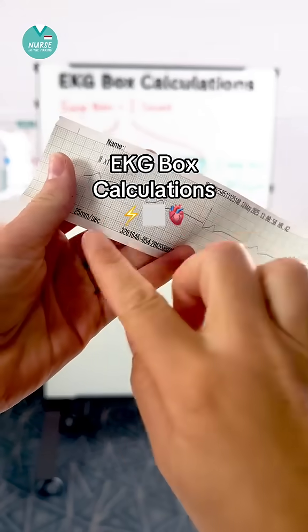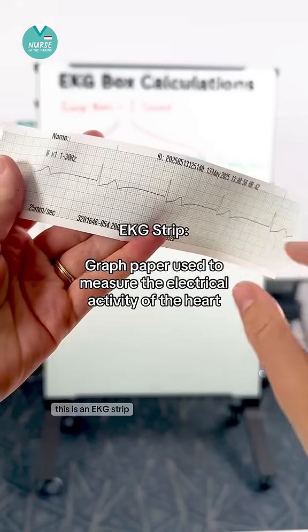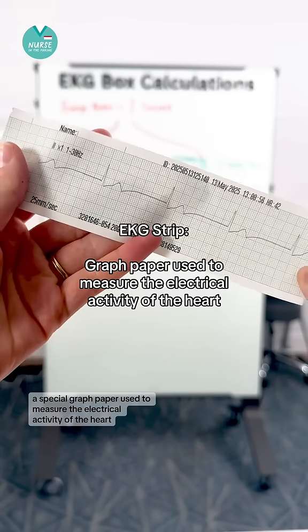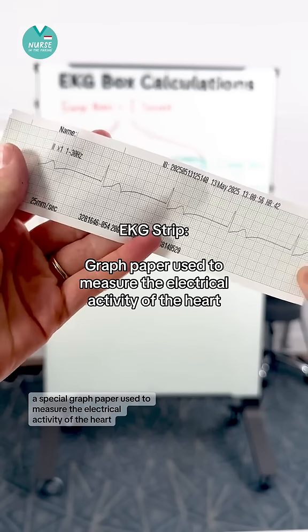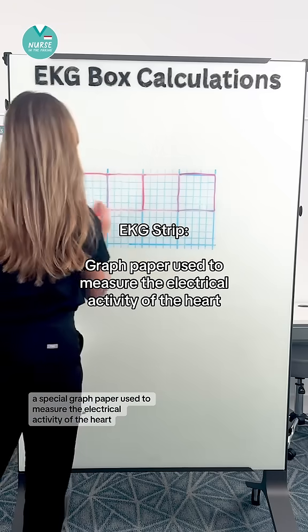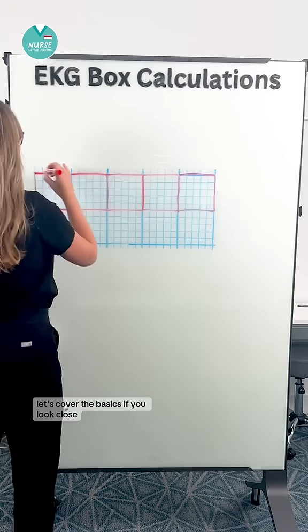Let's talk about EKG box calculations. This is an EKG strip, a special graph paper used to measure the electrical activity of the heart. Let's cover the basics.